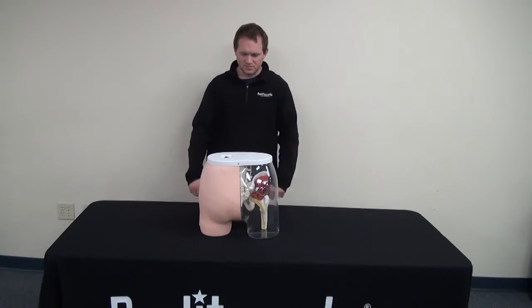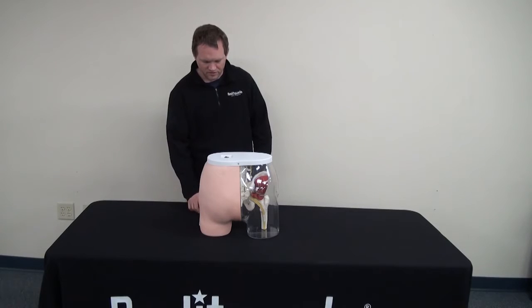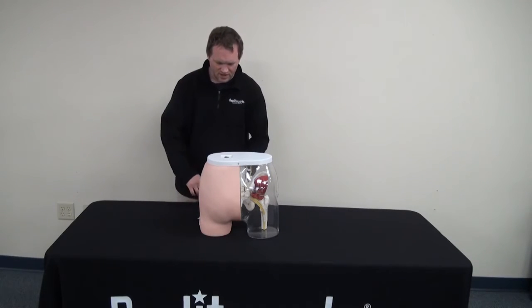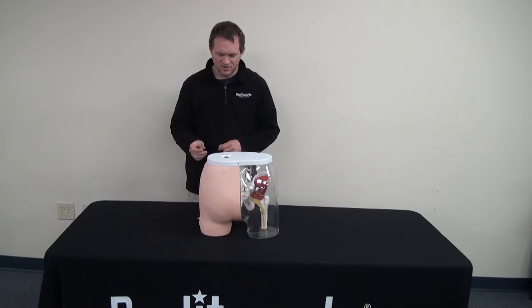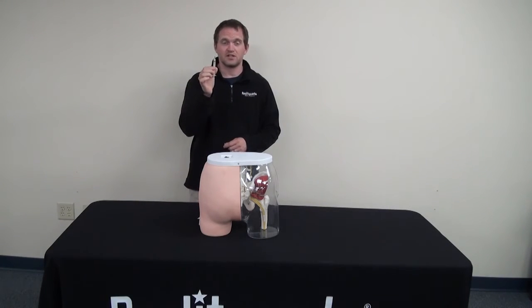Here is the simulator, and it will also come with five alcohol swabs and a 22-gauge 1-inch syringe. Do not use any liquid in the syringe.